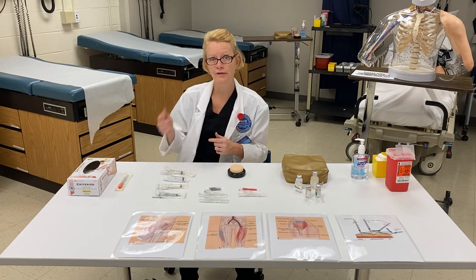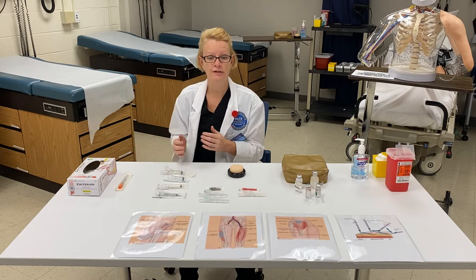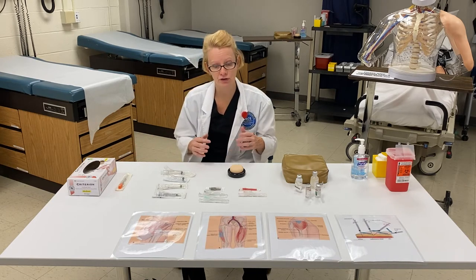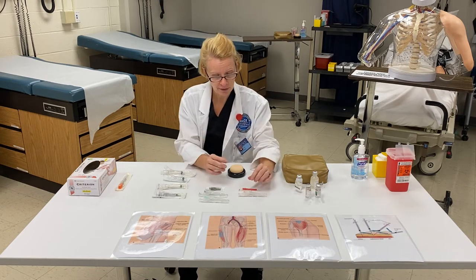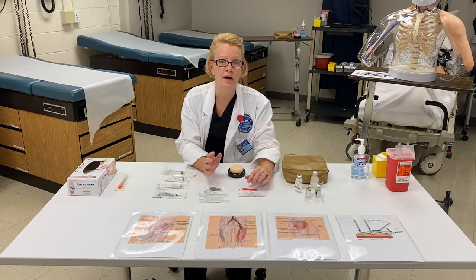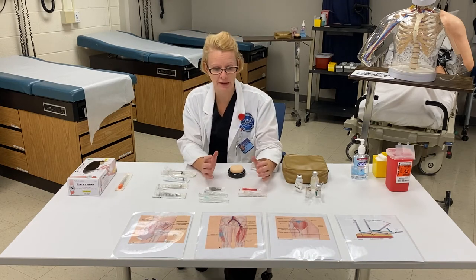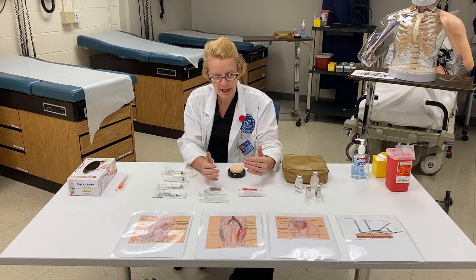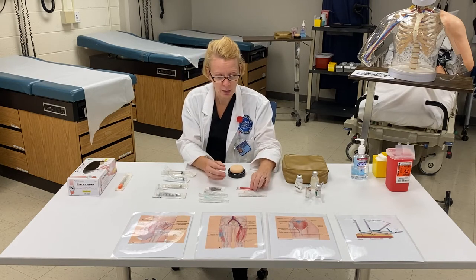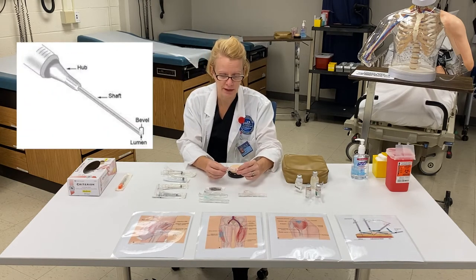And also, of course, if you're using insulin, obviously you would use an insulin syringe and not a regular ml syringe. The other thing I wanted to go over quickly was needle choice. This can be really confusing because we have lots of different needle sizes. I want to go over quickly the anatomy of the needle.